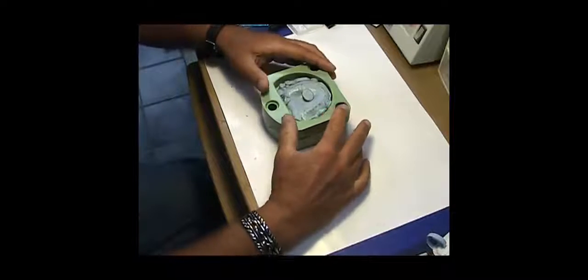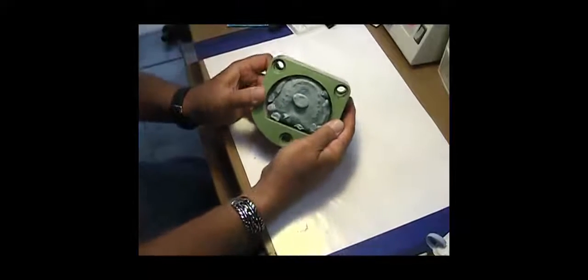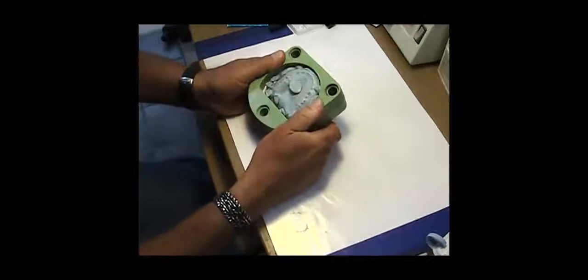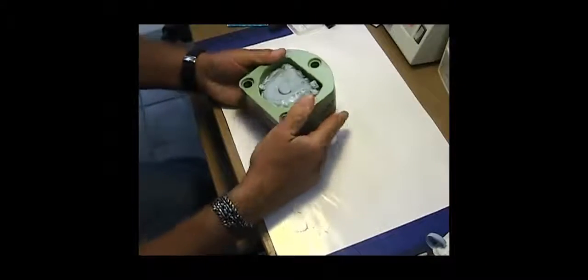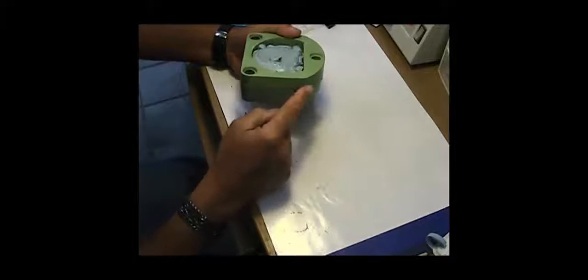This is also the way I do standard relines in my lab. If you've done it right, when you close it you should still have stone around the areas. It's going to be a little tight since this is a bigger than normal denture for this flask.